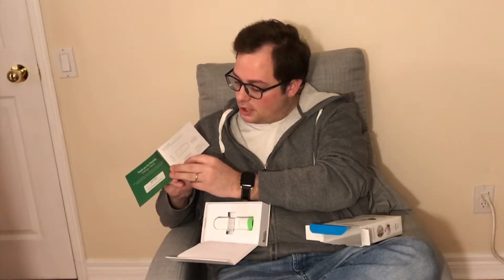So the unboxing is pretty nice. Withings is a great company — they make really nice, high quality products that feel good and give you a really great experience. I've been following them for a while and I'm very impressed with everything they do. Looks like we've got a packet here with a few information packages: the quick installation guide, the box contents — so we've got the thermometer, some batteries, and it's going to connect to our Withings app. And here is some more regulatory information.